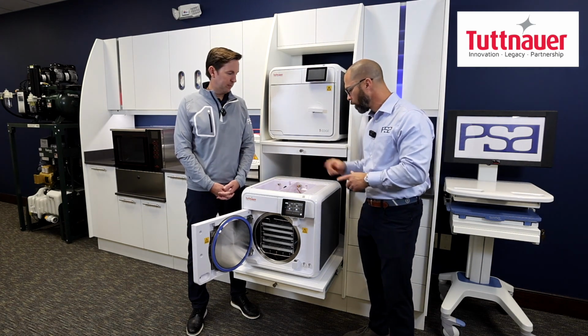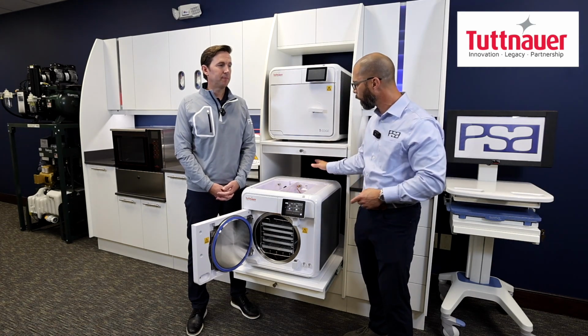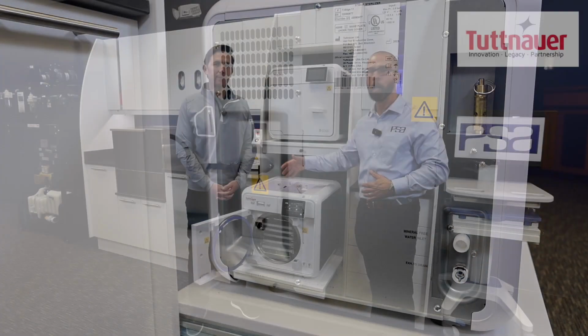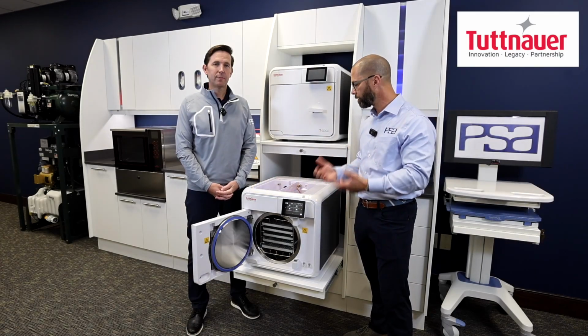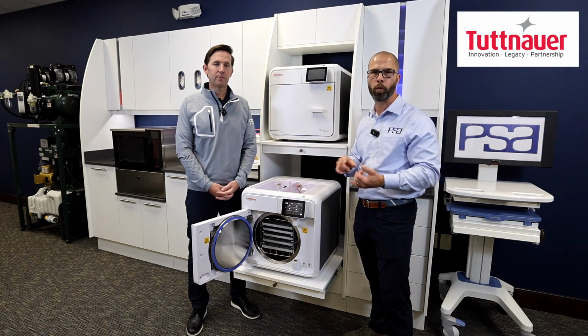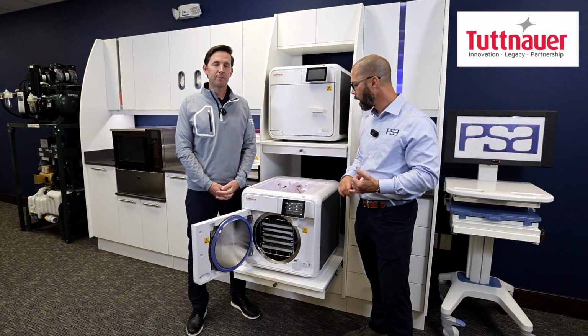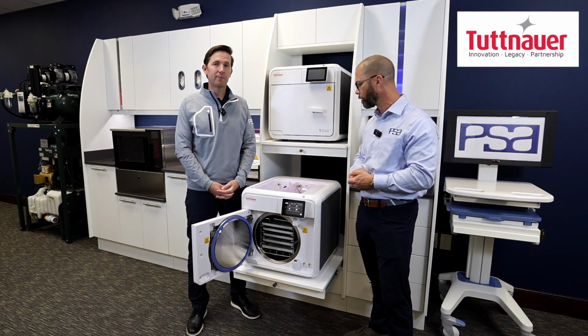While we're on this too, this is also capable right out of the box, being equipped for auto drain and auto fill for the water here. So the staff doesn't have to continually buy distilled water and pour it into these chambers. They can literally hook this right up to a reverse osmosis water system and a drain, and never have to worry about pouring water and draining the unit.